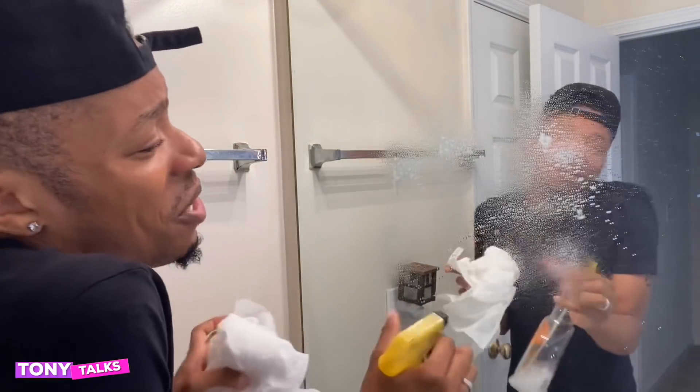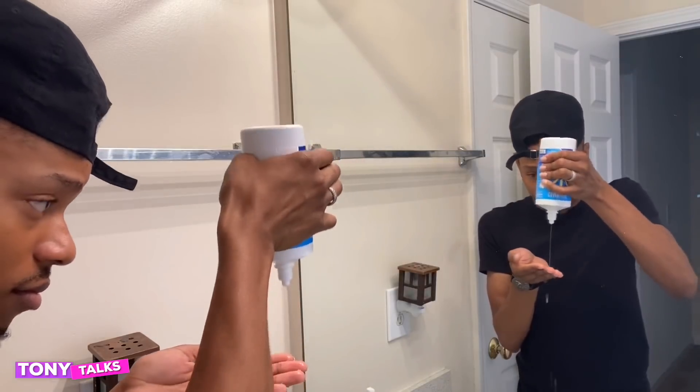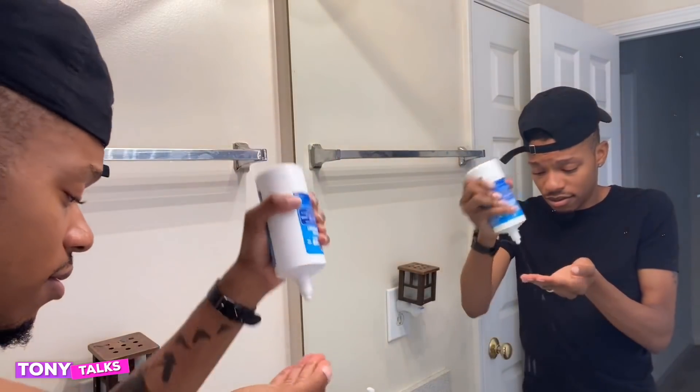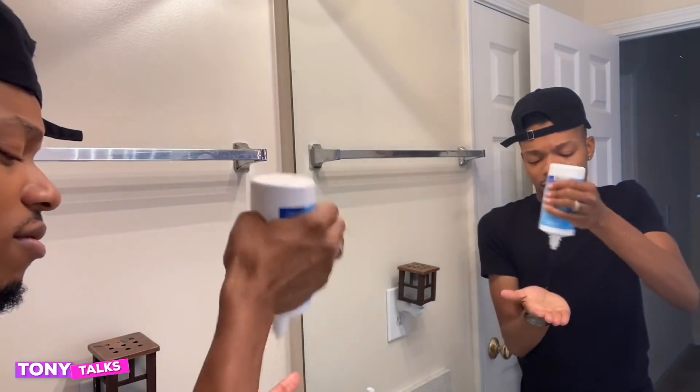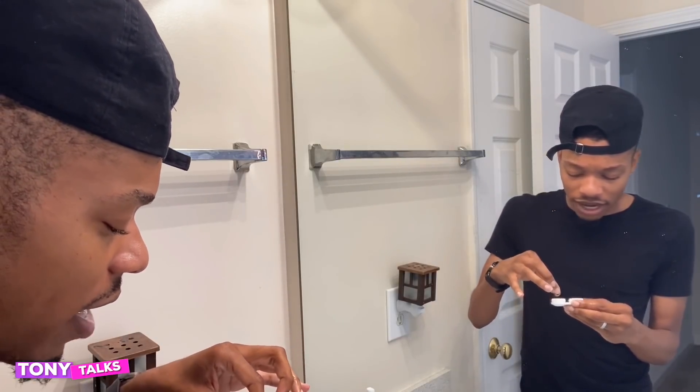So now we're on the fun part. My mirror is so dirty — hold on, I'm using car cleaner. Now you guys can see me. Make sure your hands are clean. I forgot which one was which, but it's okay because I really don't need glasses, but I went ahead and got these prescribed anyways. It's the same prescription in both eyes, so I could literally put it anywhere and it'd be fine.